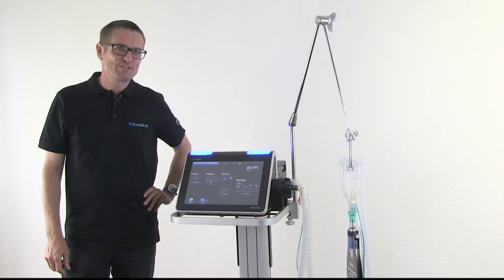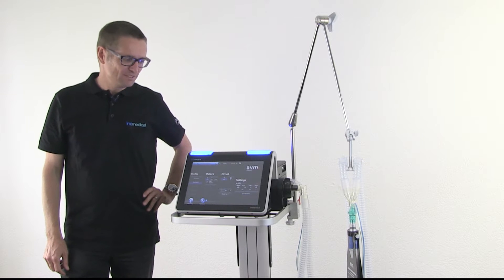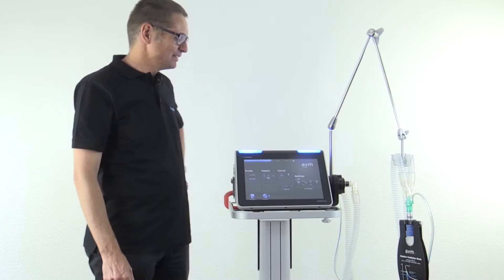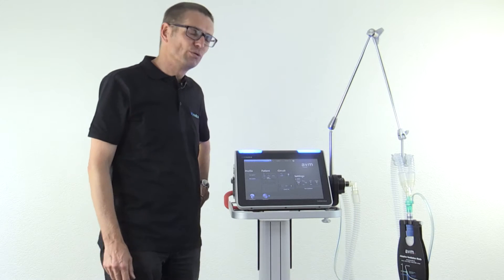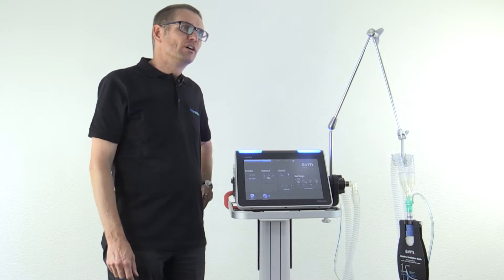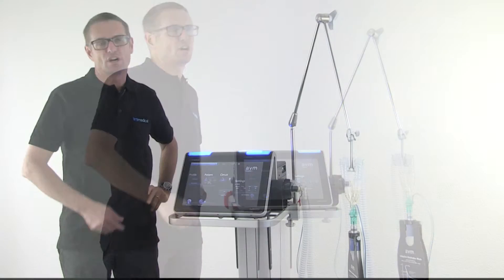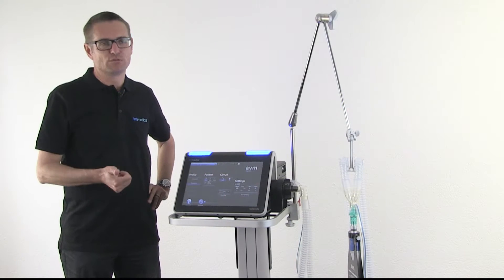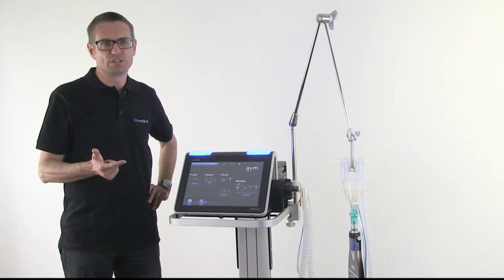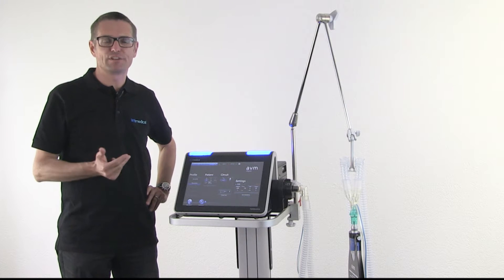I would like to demonstrate the AVM mode of Bella Vista — the adaptive ventilation mode. As you know, with most modes you have to adjust tidal volume, I to E ratio, the rate, and everything.